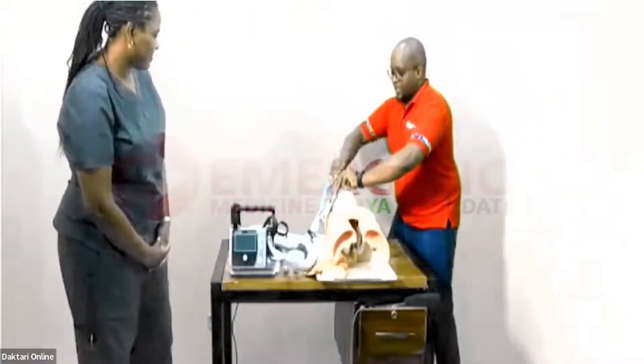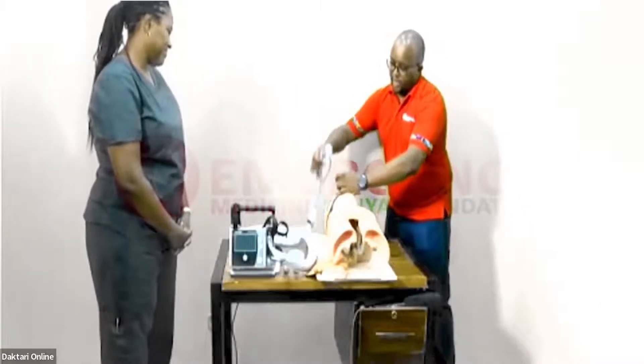This is the first time we're handling a ventilator — what are the considerations? How do we set a ventilator? Remember, ventilators are different but the principles are more or less the same. We've got Dr. Sheila here today to take us through the different aspects and help us understand the different terminologies when it comes to ventilation. Our patient is not yet connected to the ventilator.